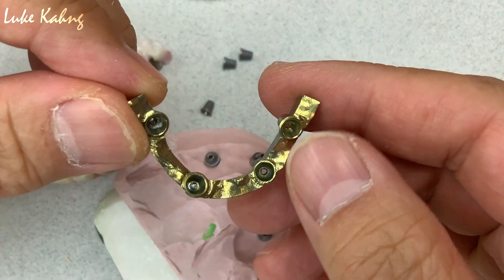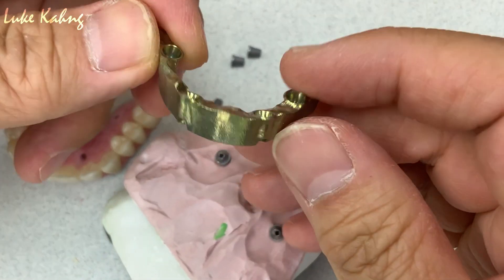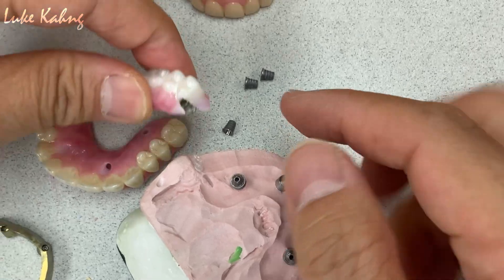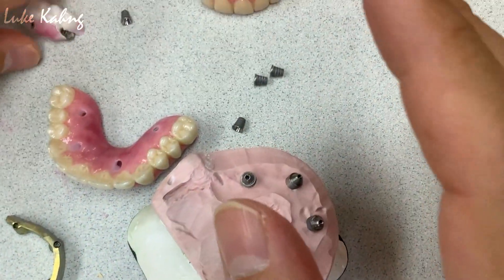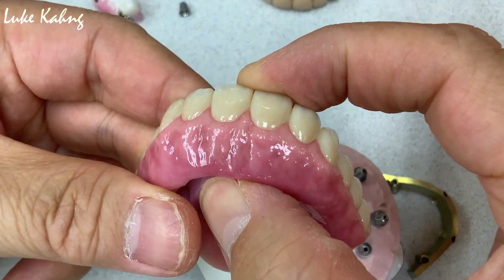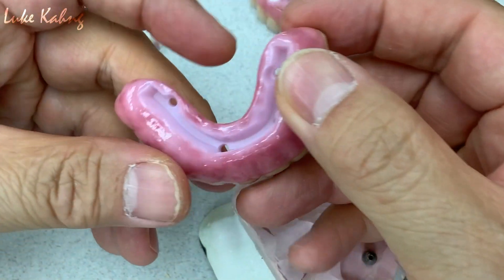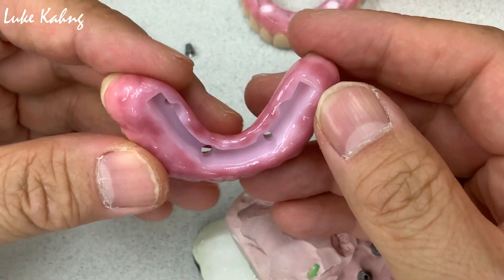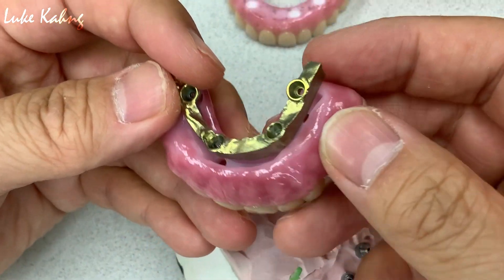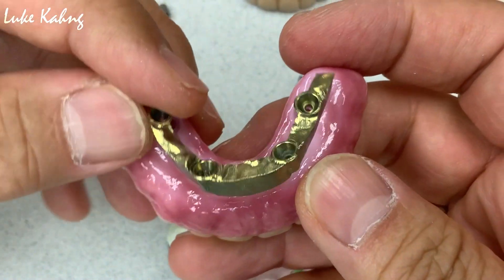It is engaged together — we milled together — and they are never going to fail, just like any other ti-base. We did this one specifically for the tall height, which is zirconia. We made a specific design underneath, just like a sleeve — a huge sleeve — so we can make this one cement soon. Because we anodize it to a light rough surface, because it bonds better.